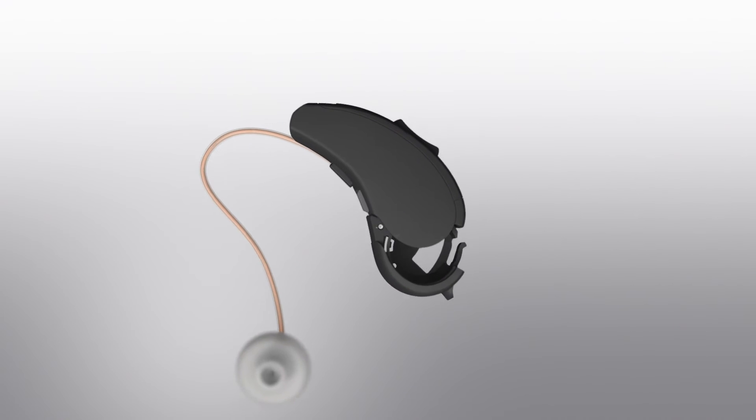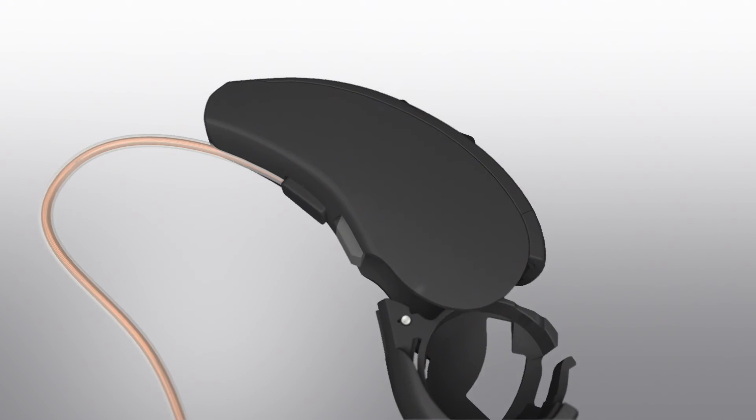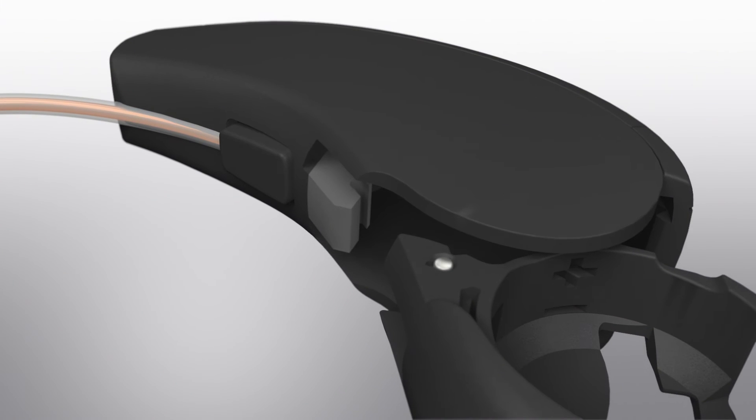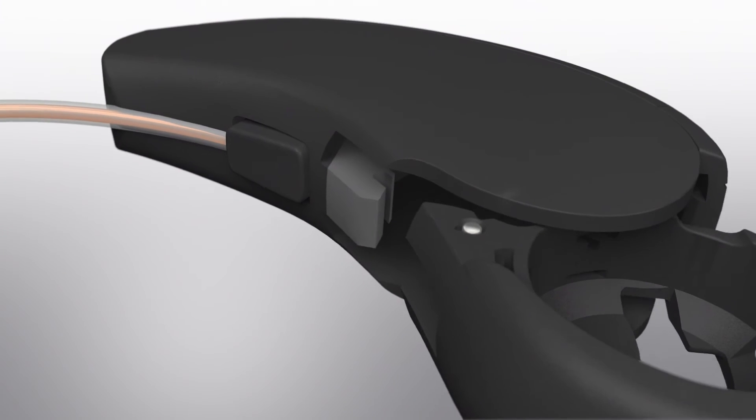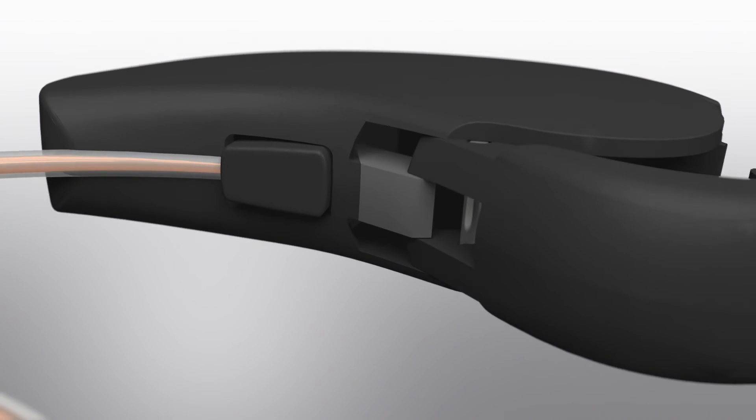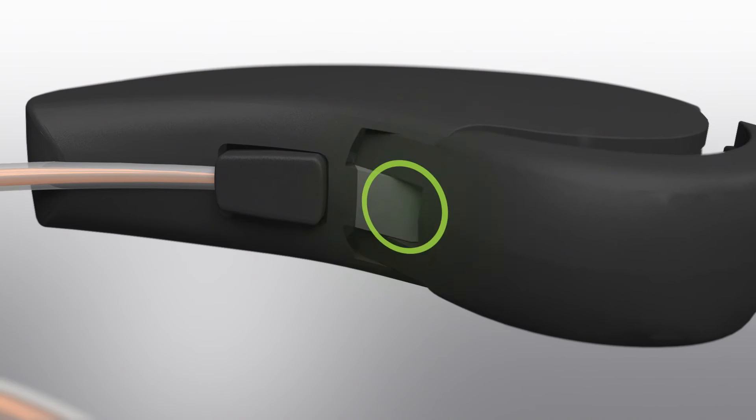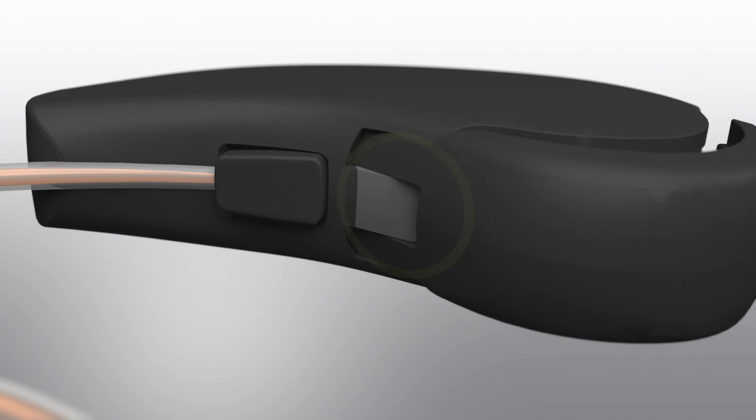This product has a clicking mechanism to hold the door in place so it does not require removing any parts at this point.